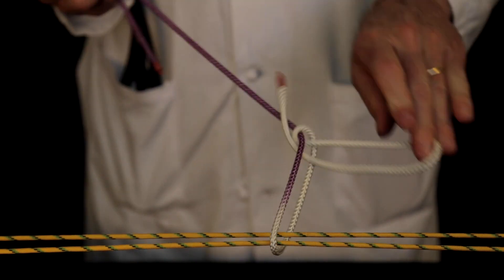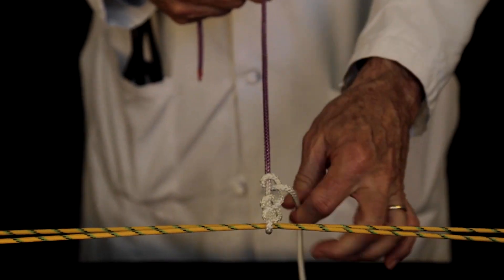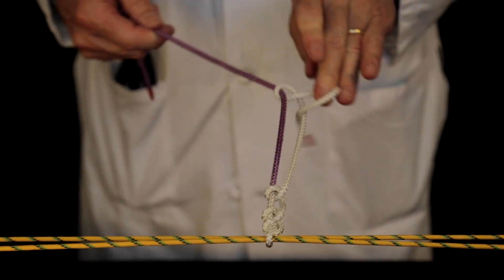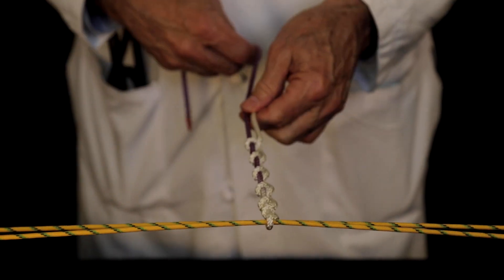Start with the anatomy of a knot. Surgical knots are very simple. Surgical knots are variations on single loops of one suture arm around the other piled on top of each other.